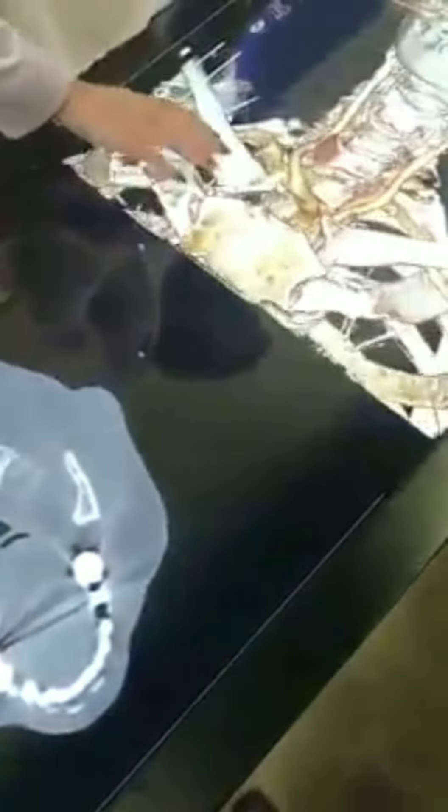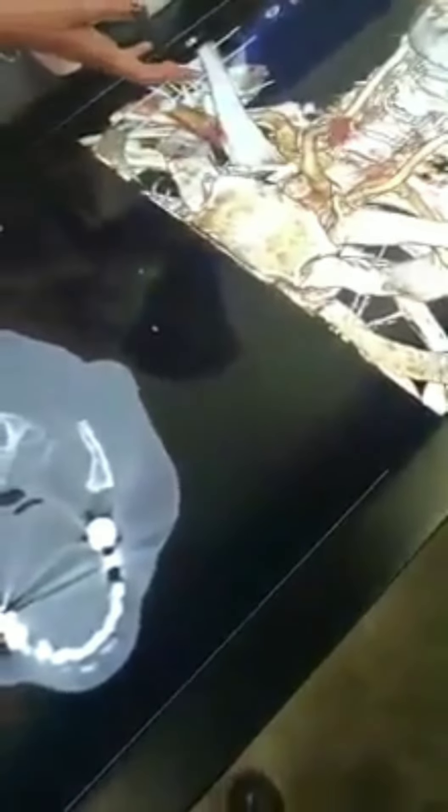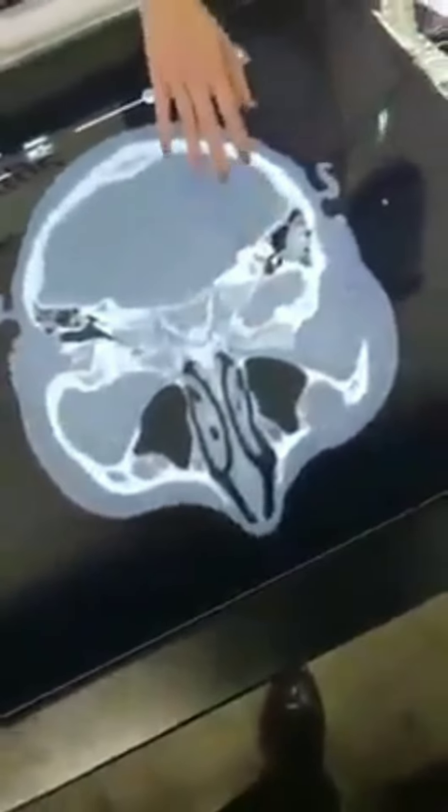Most interestingly, you can load in your own patient's MRI scans and get a 3D model of what you see. Here we have a post-operative scan of a patient with a brain aneurysm, and this is the actual CT that was provided. You can slide through the CT and see exactly where the clips were placed. You can also make a quick cut into the 3D model to see where the clips were placed — it's more intuitive in 3D than just focusing on the CT alone.